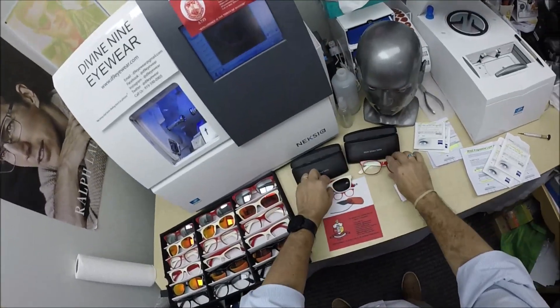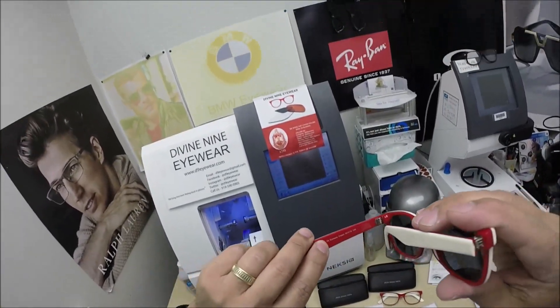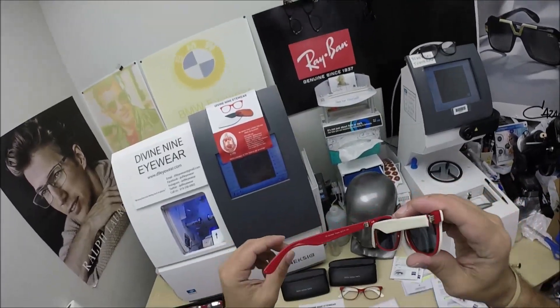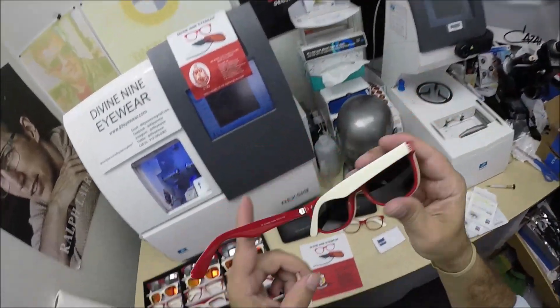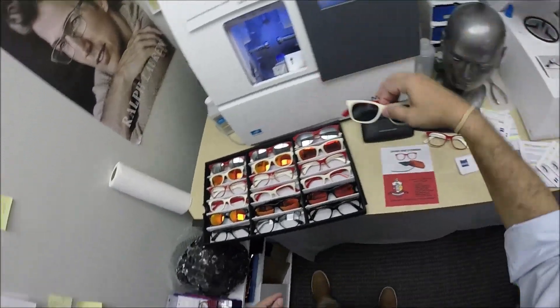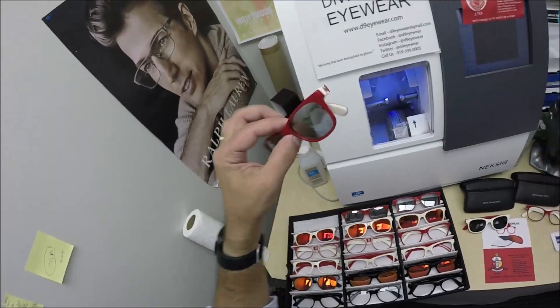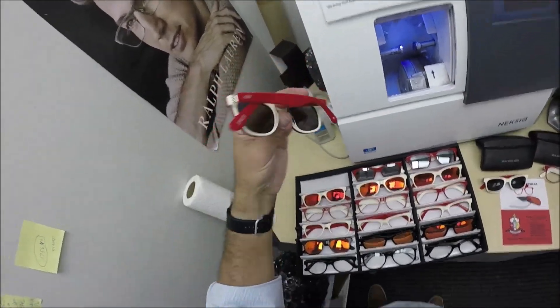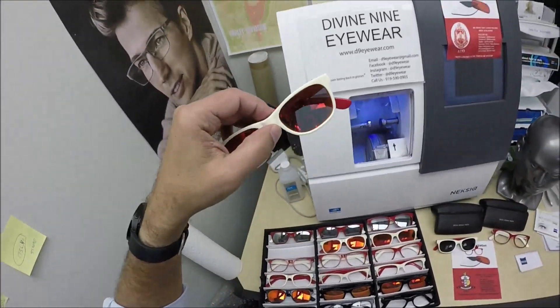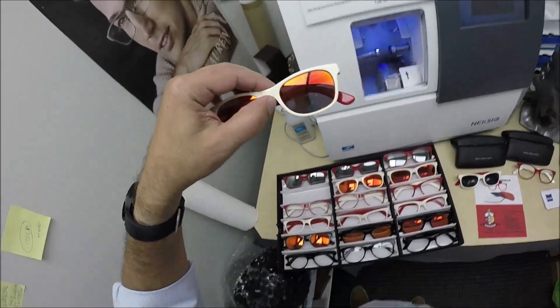On the inside it has my D9 Eyewear branding — cream on the outside, crimson on the inside. You can also get it with just polarized gray sunglasses, or polarized gray with the silver-white mirror, which is the closest we have to a cream color to match. And of course, you can get a red mirror in the cream pair with crimson on the inside, so that matches.